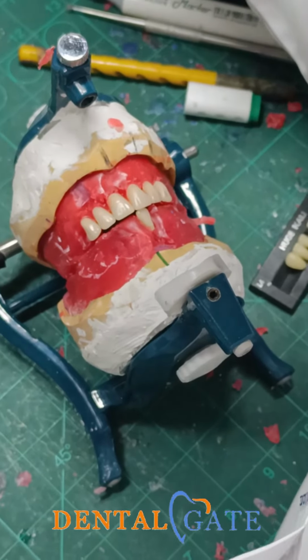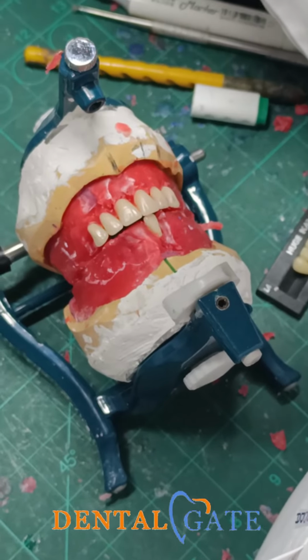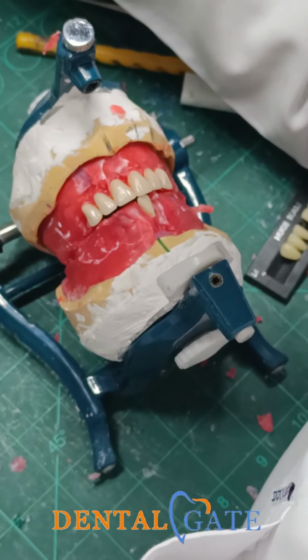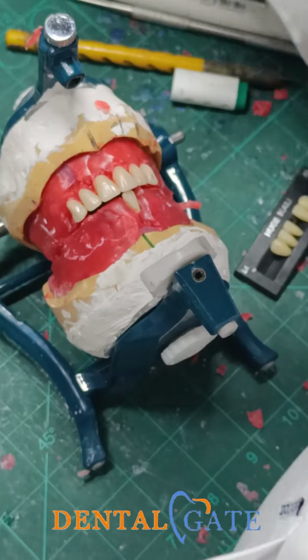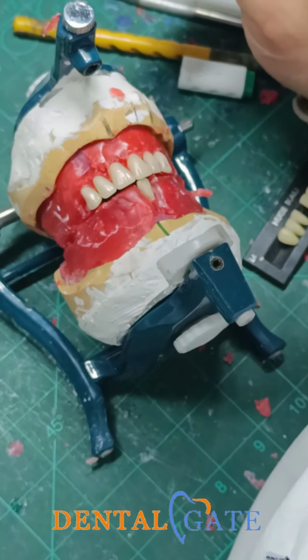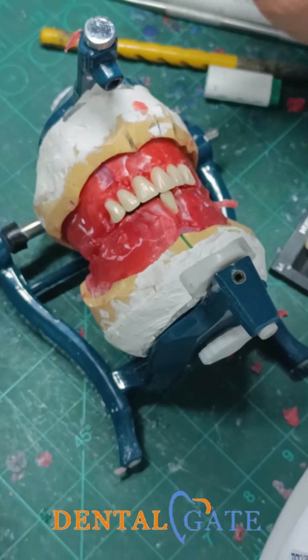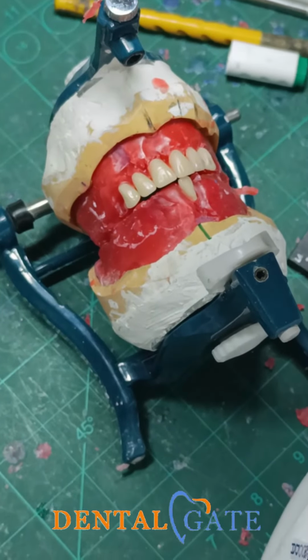And we must make that according to the incisal guidance. I may want to alter the overjet, but typically start with 1 millimeter. In our practical now, we don't have a patient, a fully adjustable or a semi-adjustable articulator. We will adopt 1 millimeter only for the complete denture. And naturally, the most proper overjet and overbite in the complete denture should be 1 millimeter, okay, if you don't have a reference of the incisal guidance.